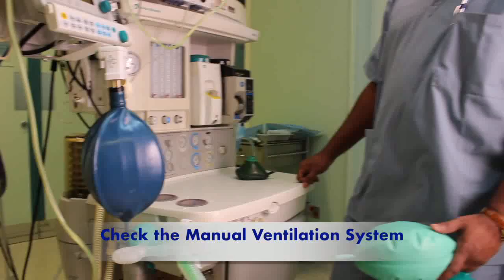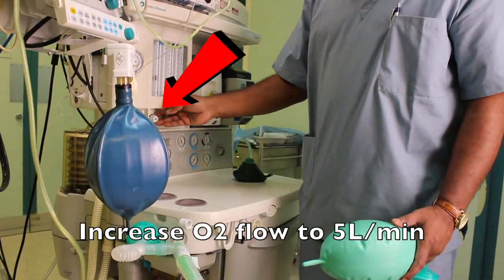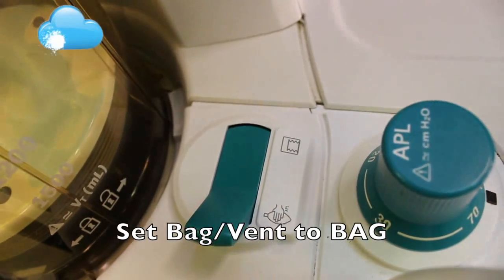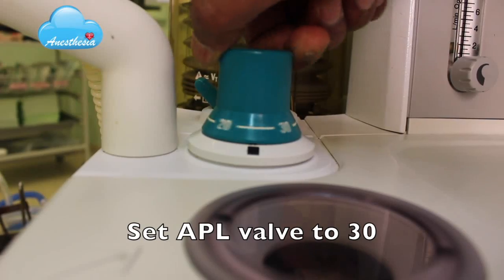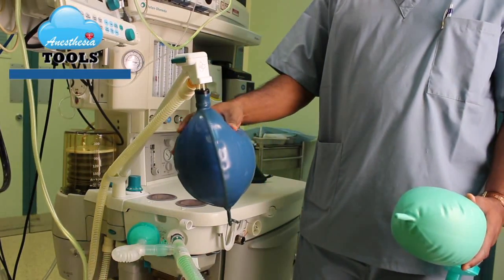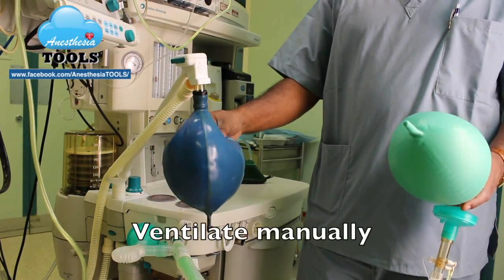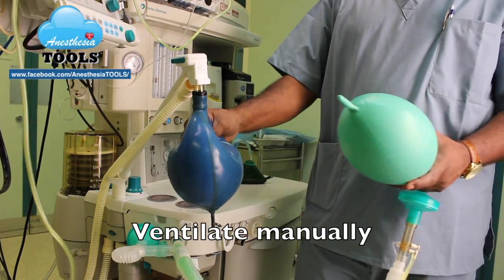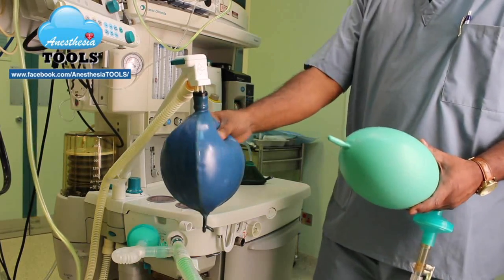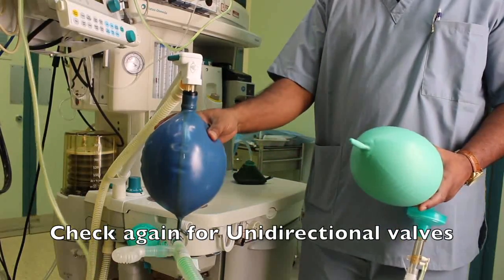Now we will check the manual ventilation system. Connect the test lung, increase oxygen flow to around 5 liters per minute, and set the bag selector to bag mode. Set the APL valve to 30 and ventilate manually. Check for inflation and deflation of the test lung by way of appropriate feel of resistance and compliance. Check again for the functioning of the unidirectional valves.